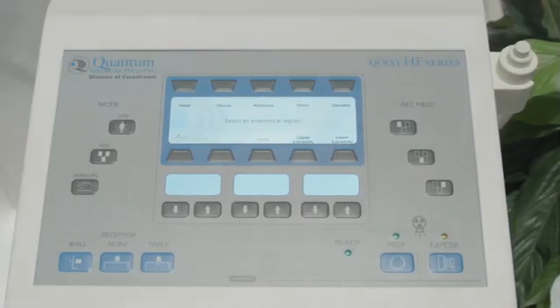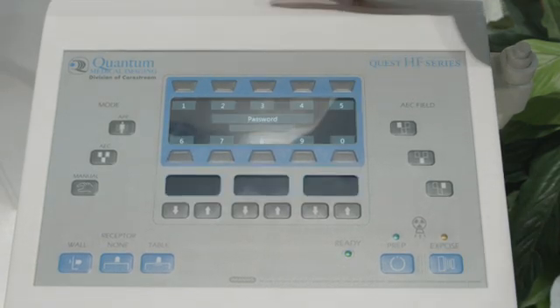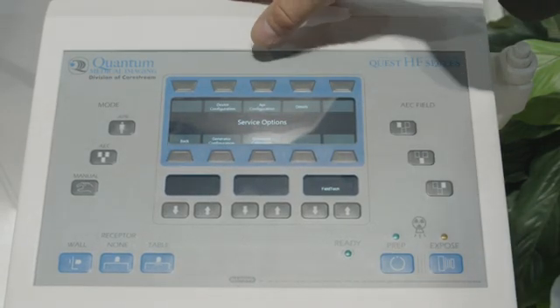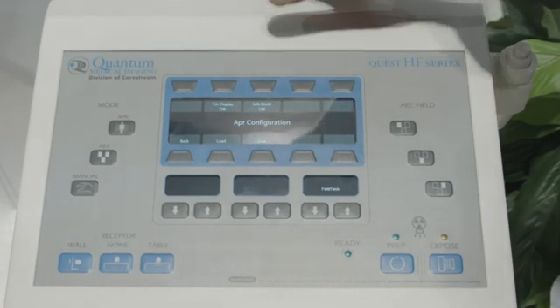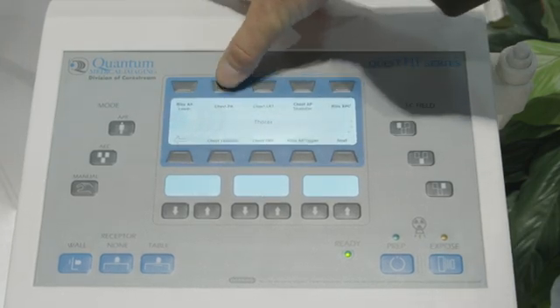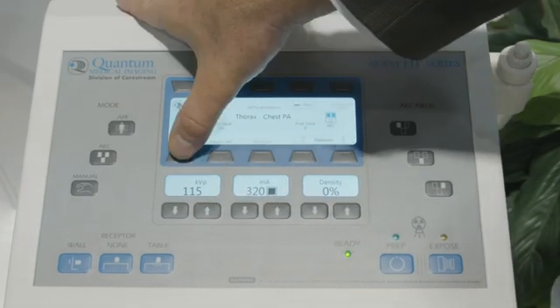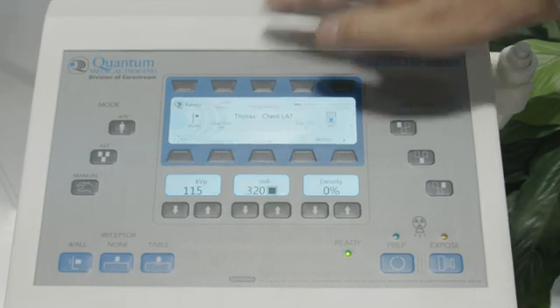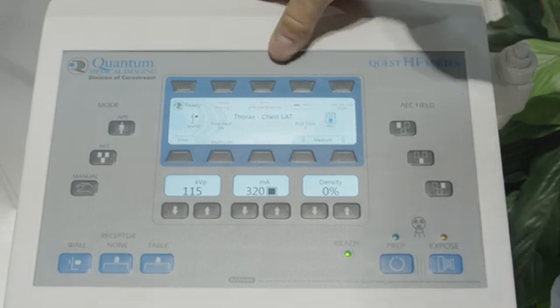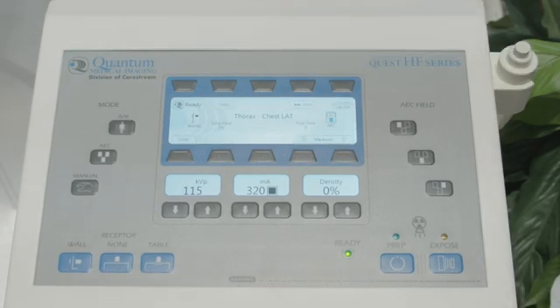In the Quest example, to configure for the chest PA and the chest lateral, we double click on the ready button, enter the password, and enter the APR configuration, then turn on the edit mode. Here we select the view — chest PA — and we can edit our technique for KVP, MA, time, and AEC. Then go back to view, chest lateral, and configure your changes. Any changes generate the save button, and then we exit the APR and we're all set.